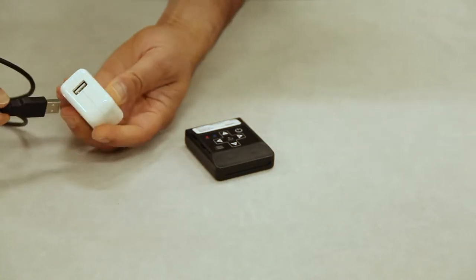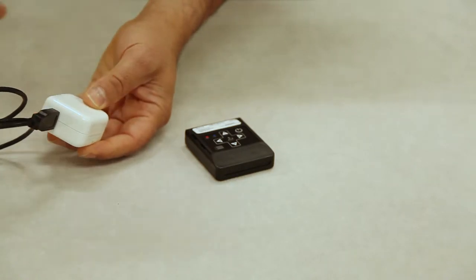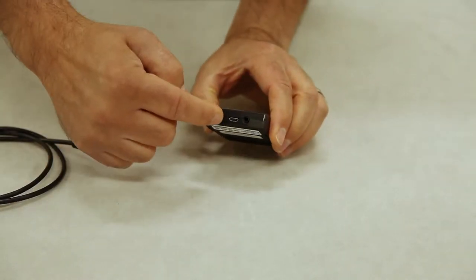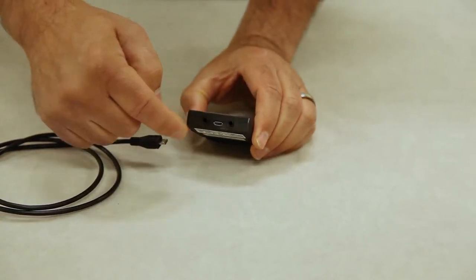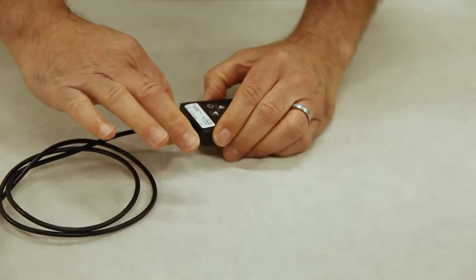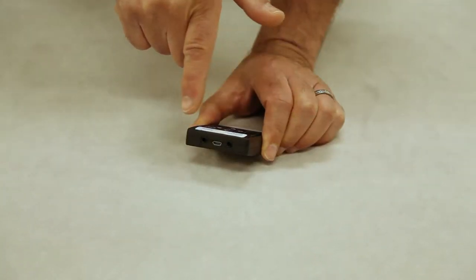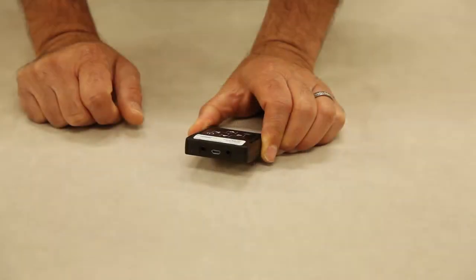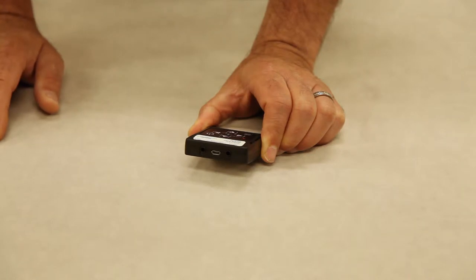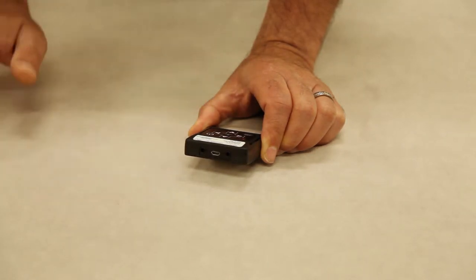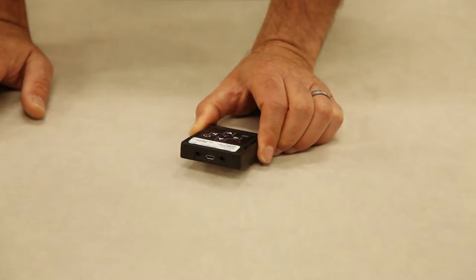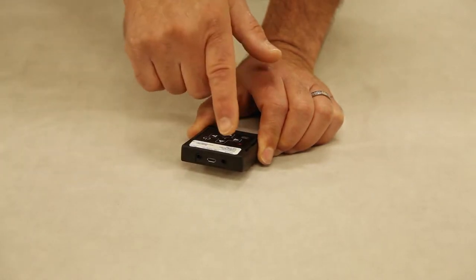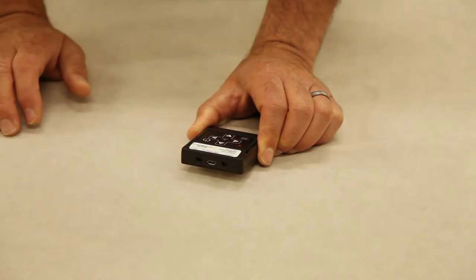You can remove the iPad cable, plug in the USB cable to charge it. Charging port's right here in the front or on the top. It takes about three hours to charge. You have two ports here for your own external switches. Most assistive apps use single switch, but there are some apps that require two steps like Sounding Board and Proloquo2Go where you need to make a selection. Also when you're using this for media playback such as YouTube or iTunes, you have the ability to do play/pause with one jack and next track with the second jack.